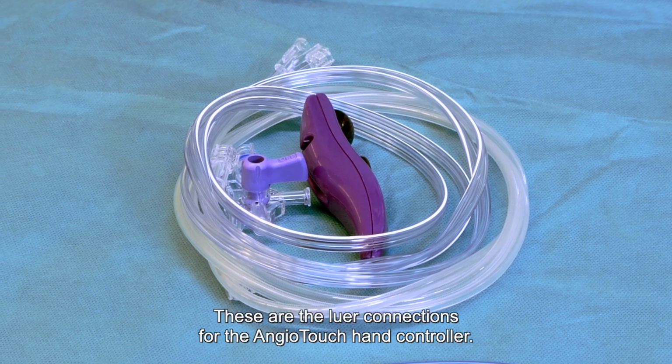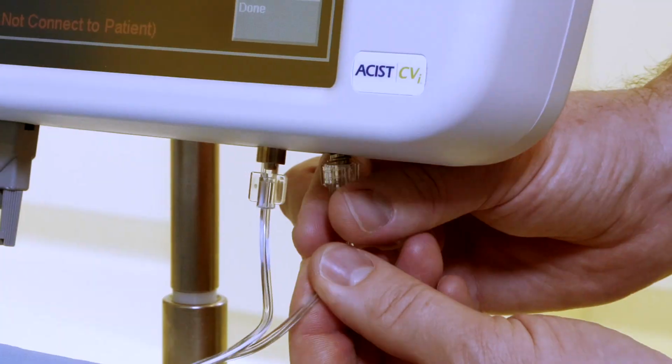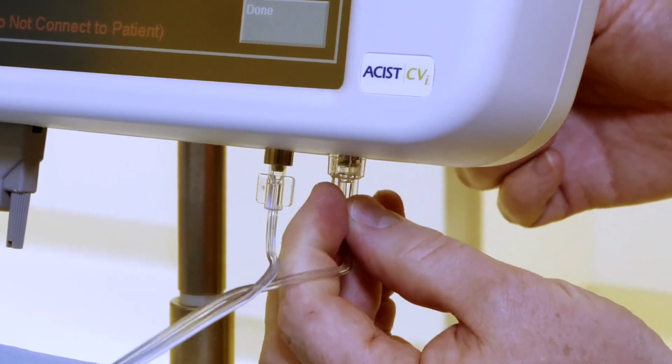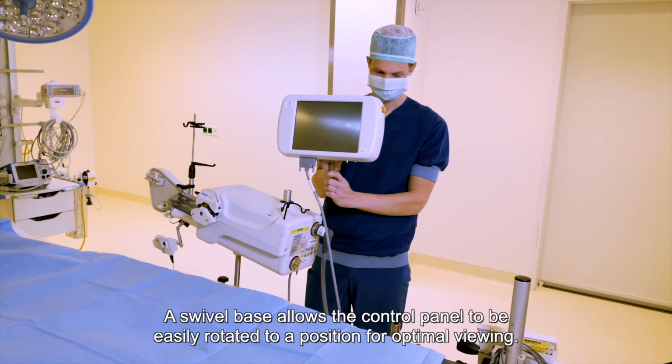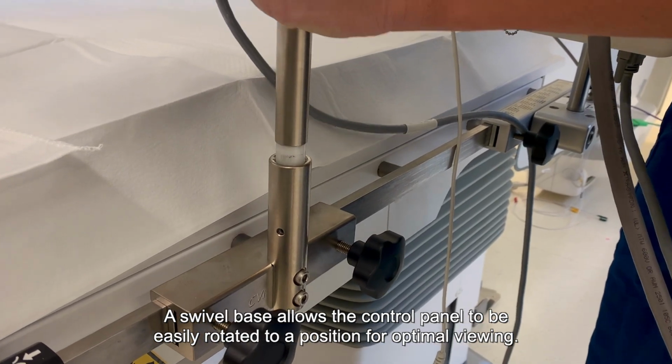These are the Luer connections for the AngioTouch hand controller. A swivel base allows the control panel to be easily rotated to a position for optimal viewing.